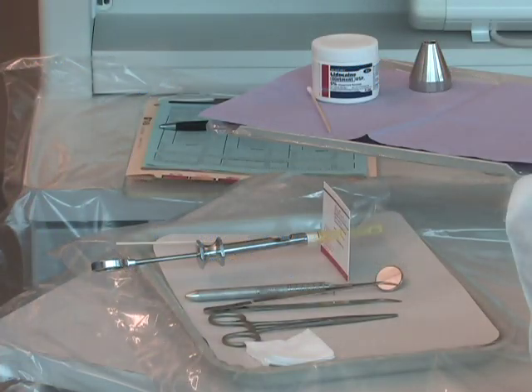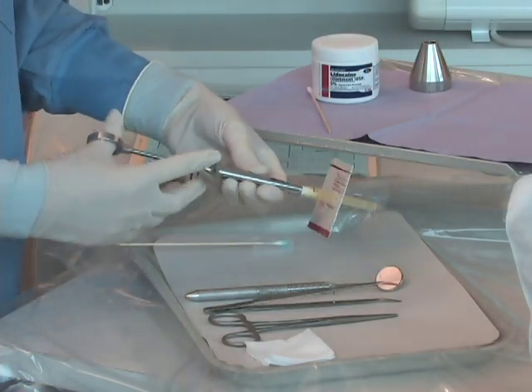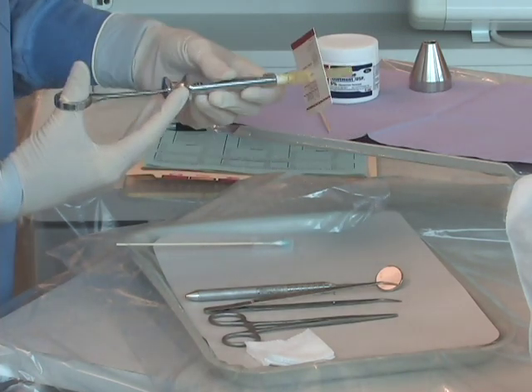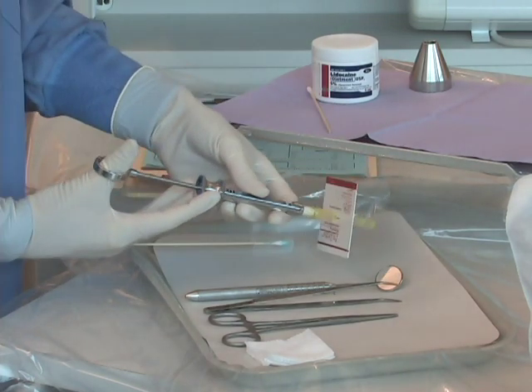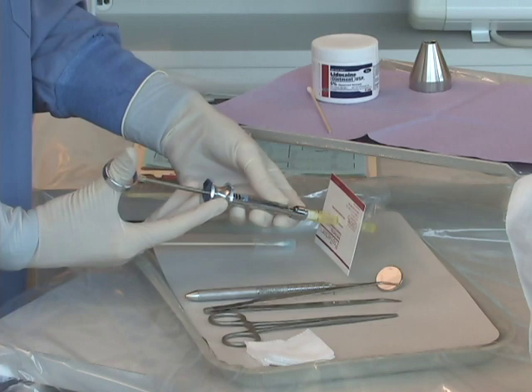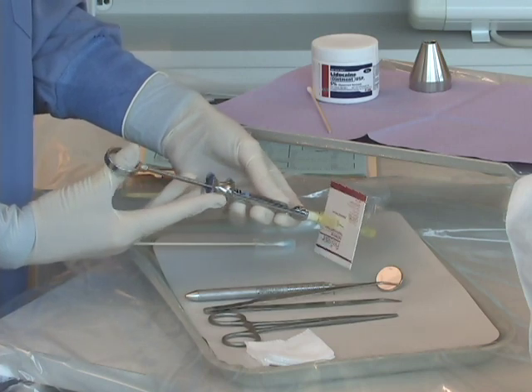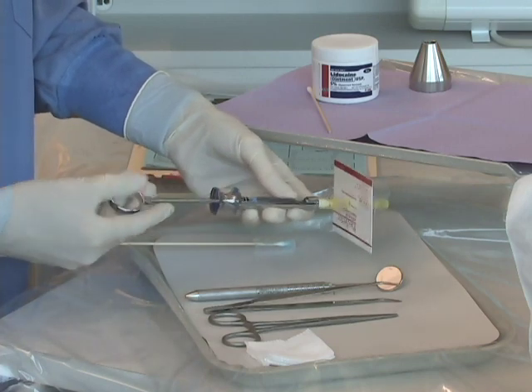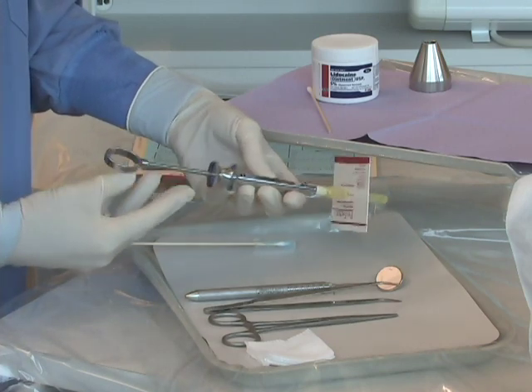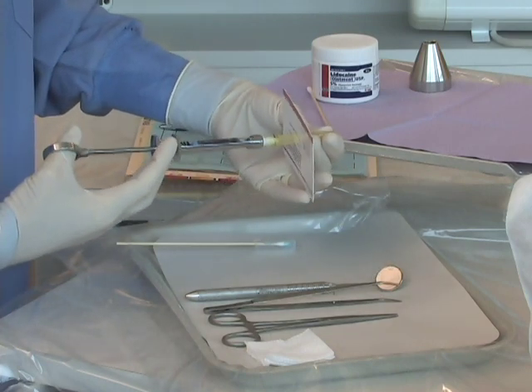Assure that all local anesthesia armamentarium is assembled and properly functioning. After loading the appropriate local anesthetic agent, check to make certain the harpoon is engaged, the cartridge is visible, and the bevel of the needle is oriented correctly.